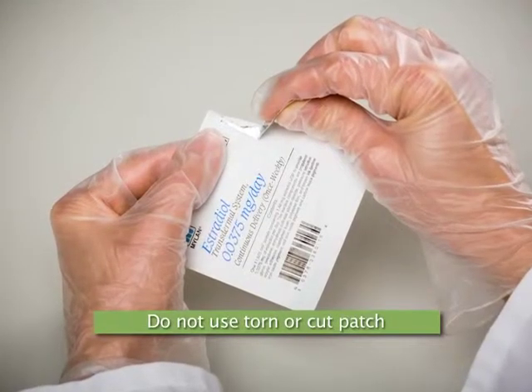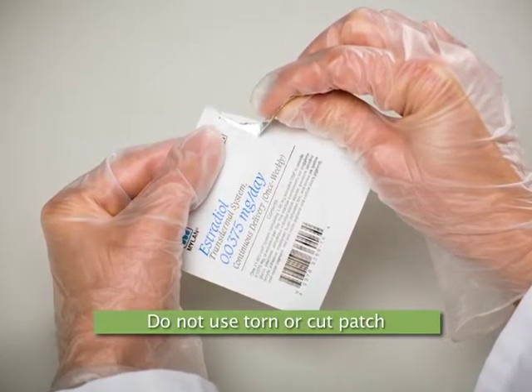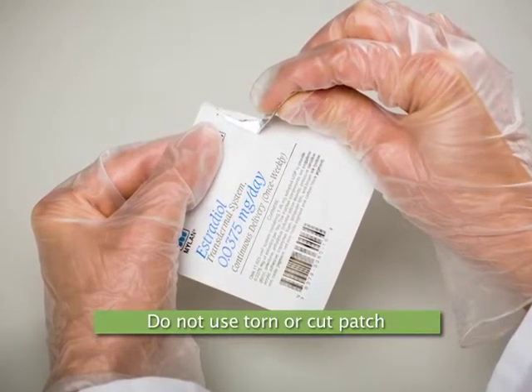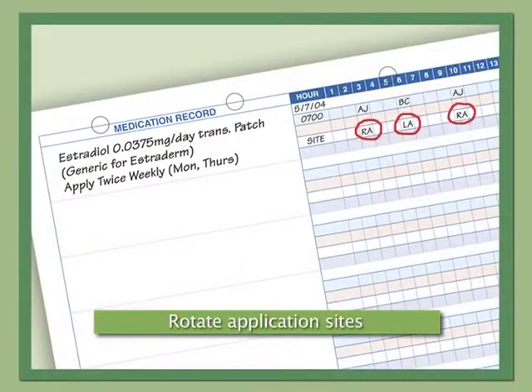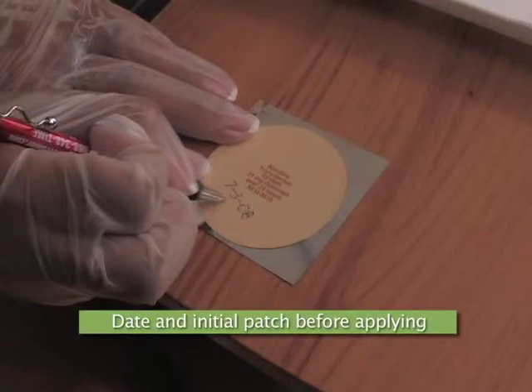Be careful when opening the outer package containing the patch. If the patch is torn or cut in the process of opening, discard the patch according to facility policy and obtain a new patch. Always rotate application sites and date and initial patches before applying.